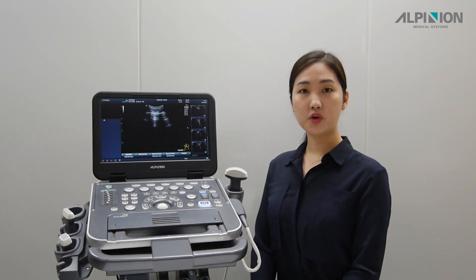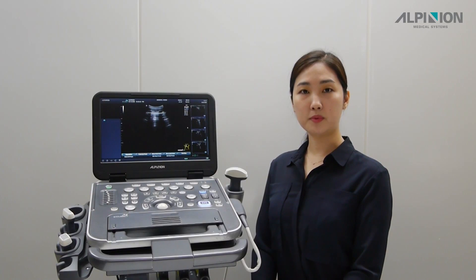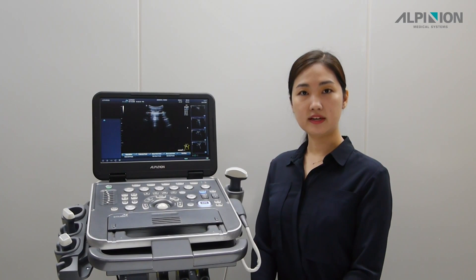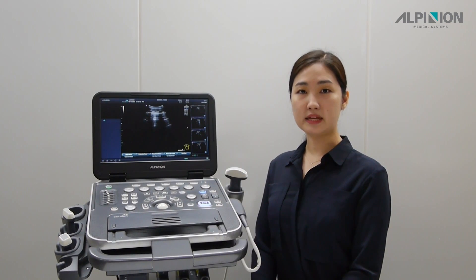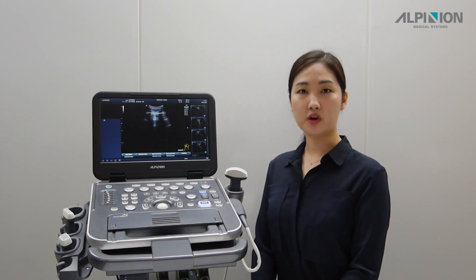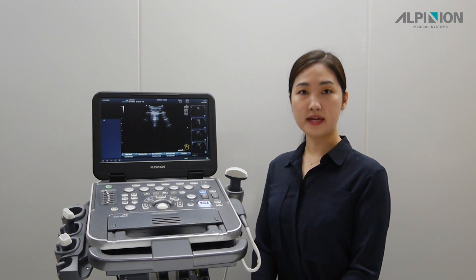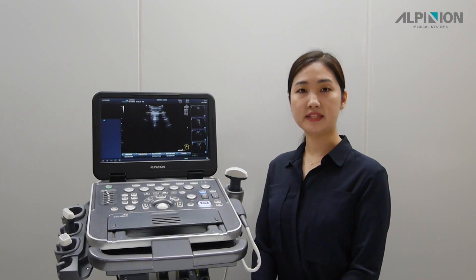The coronavirus pandemic is challenging global health, and it is certain that lung ultrasound is exceptionally advantageous when identifying patients with COVID-19, as it is compact, easy to use, and relatively safe.